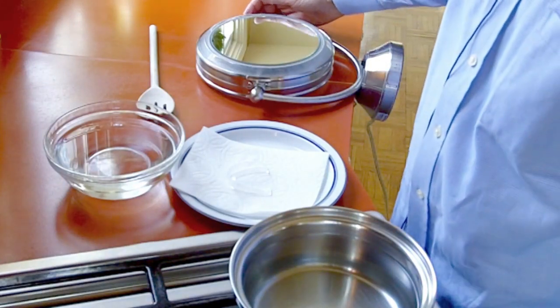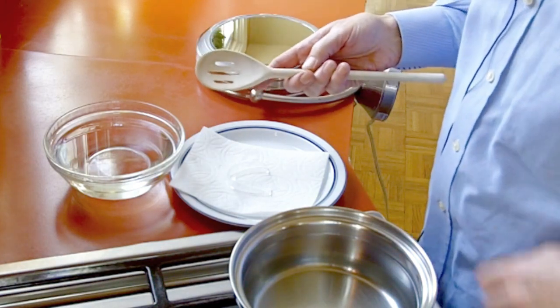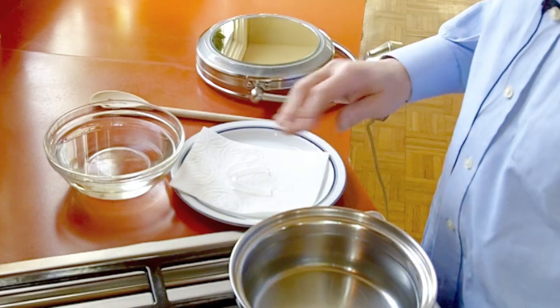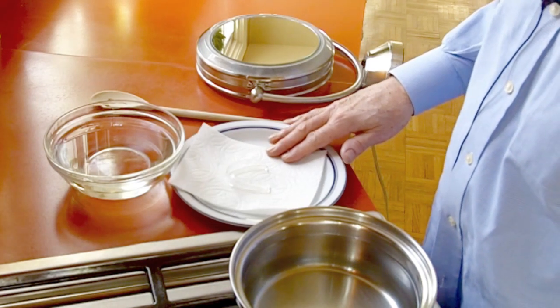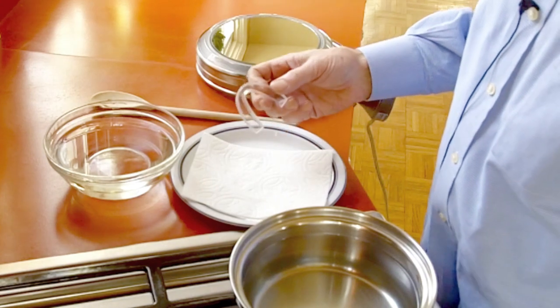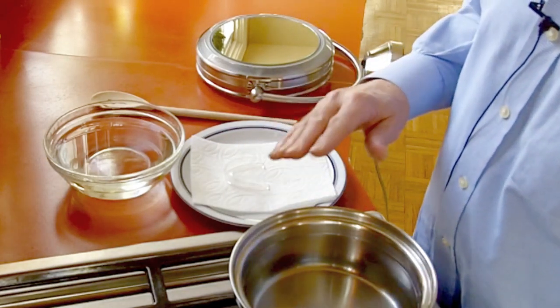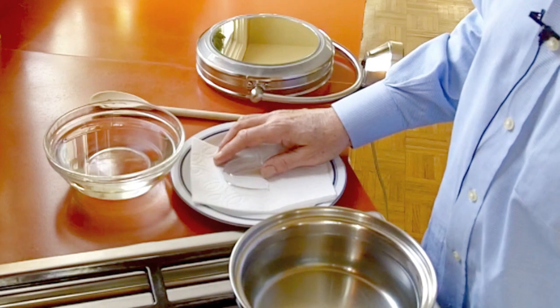You will need the following items to mold and fit the mouth guards: a large wooden spoon, preferably slotted to allow the water to drain out when removing the mouth guard from the hot water; a pan that is at least three inches deep with water filled to within an inch of the top; a paper towel, preferably set on top of a warm plate so that the mouth guard does not cool down when transferring it from the hot water to your mouth; and a small mirror. The mouth guard should be cleaned with an antibacterial soap before beginning the fitting process. Boil the water in the pan, and do not use a microwave as it can sometimes superheat the water and make the mouth guard melt in just a few seconds.